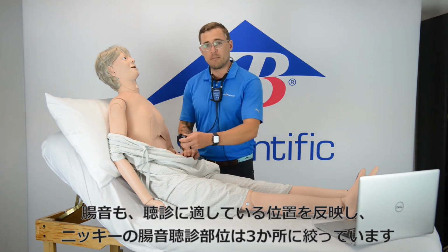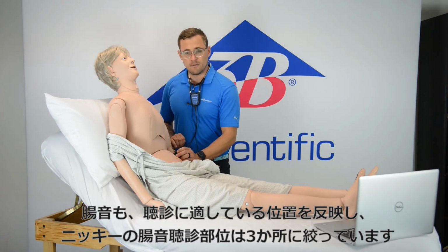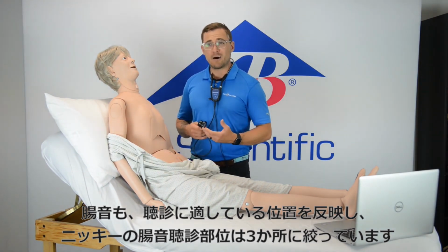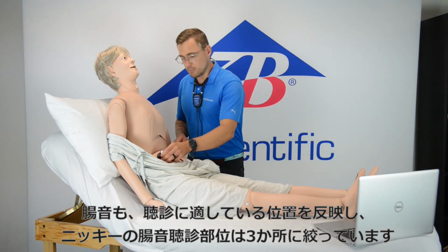Lastly, with the bowel, we have 3 auscultation points in the bowel where we're able to hear various bowel auscultation sounds and only if you're in the appropriate area.